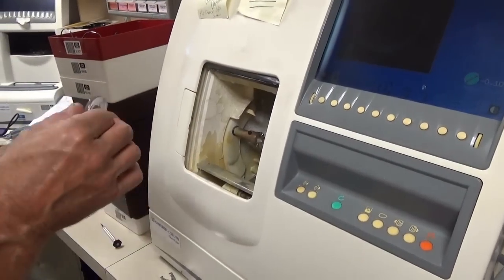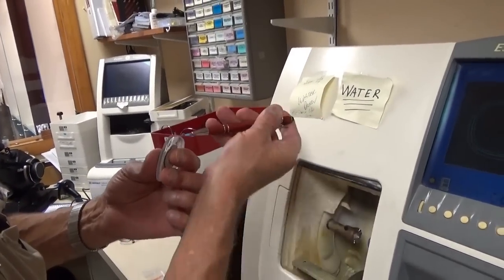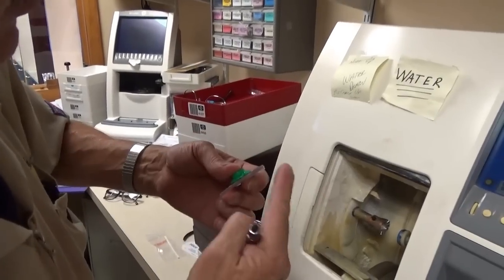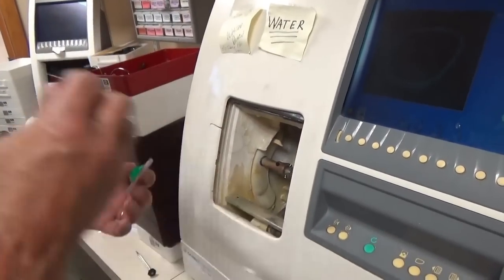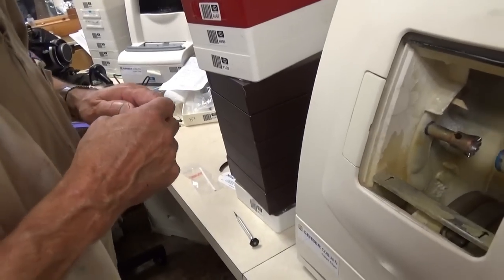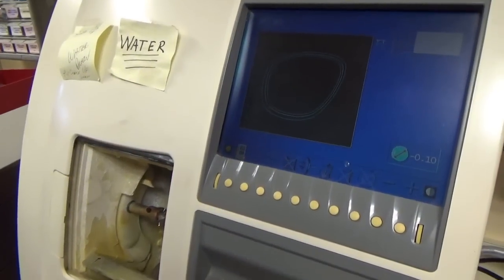If you decide later that you want to change anything, you can only take it all the way off — you'll take this part off too, which will make the lens smaller. In order to get that bevel point right, if you flatten it you don't have as much of a point and it won't stay in as well. It can be done, but you'd rather not have to do it. This is very high-tech, even for 2001.